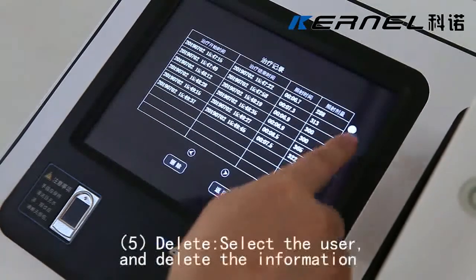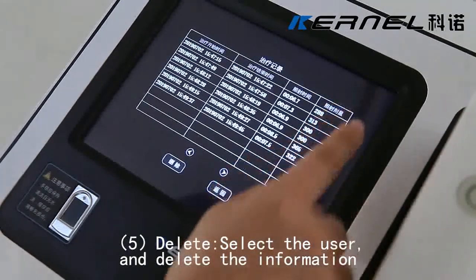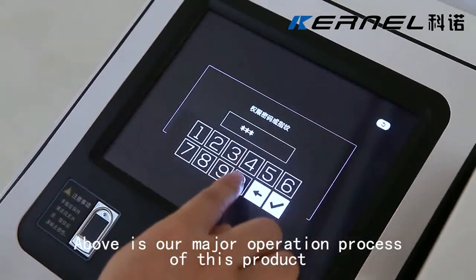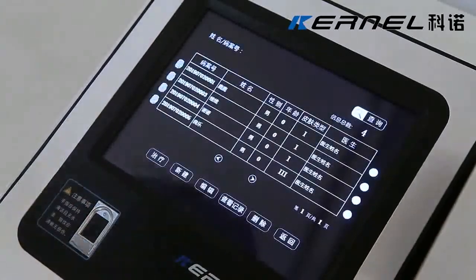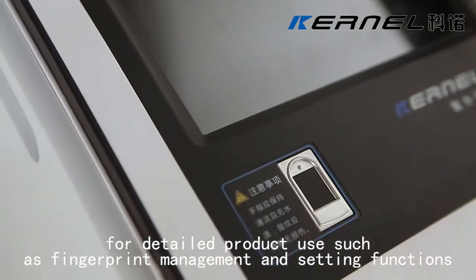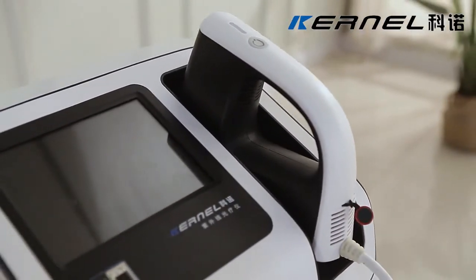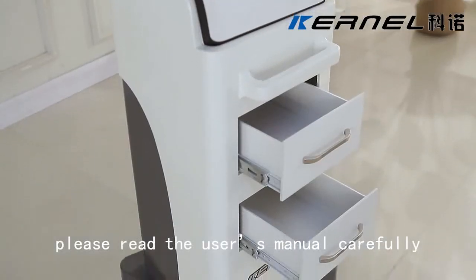You can also delete treatment records. Delete: Select the user and delete the information. Above is the major operation process of this product. For detailed product use such as fingerprint management and setting functions, please read the user's manual carefully.